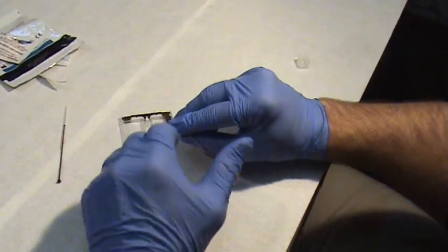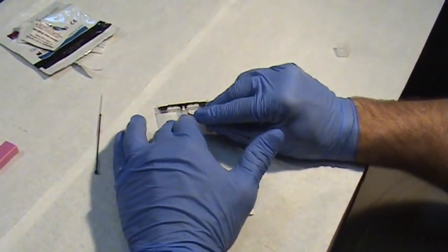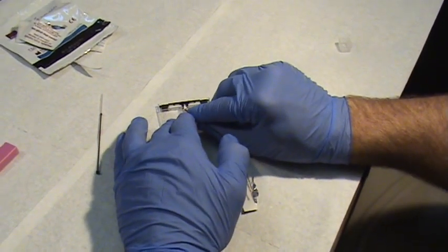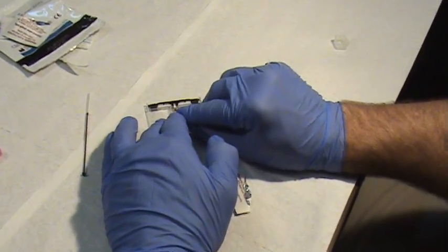There's reagents in this white gauze and it's good to hold for up to 30 minutes if it doesn't dry out.